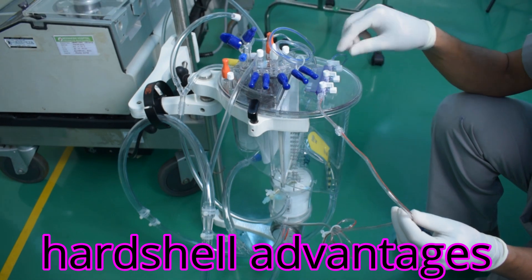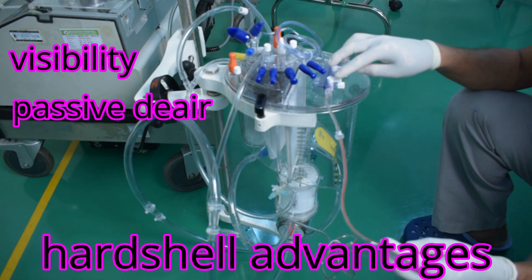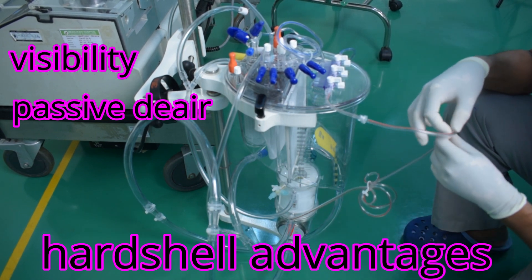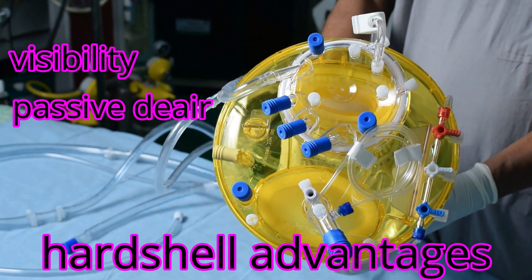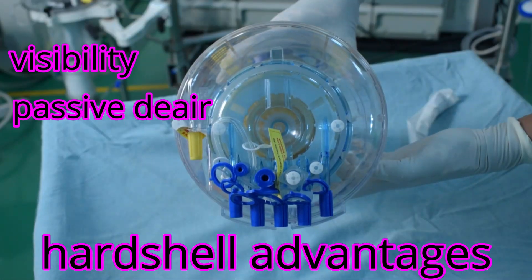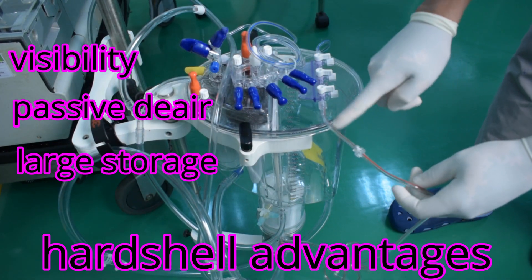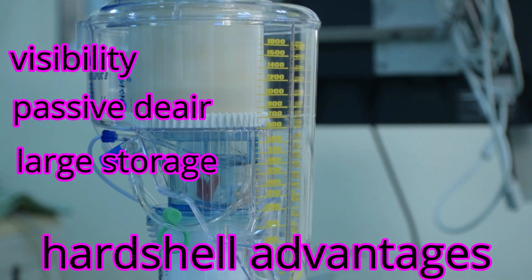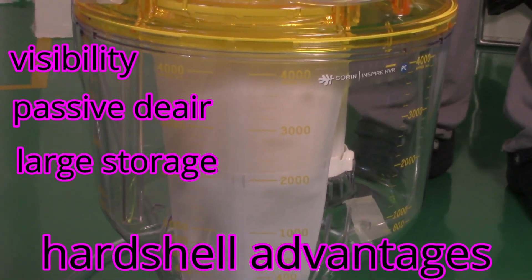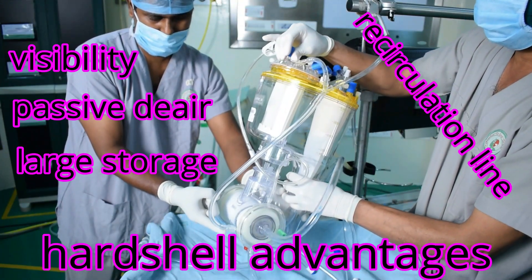The open system has several advantages: better visibility of the reservoir level, easier passive emission of air entering from the venous and cardiotomy lines — so you need not actively aspirate air once you go on bypass, as air migrates to the top of the reservoir and escapes by itself. It also has a large storage capacity.